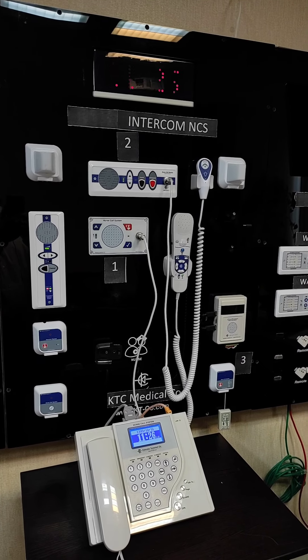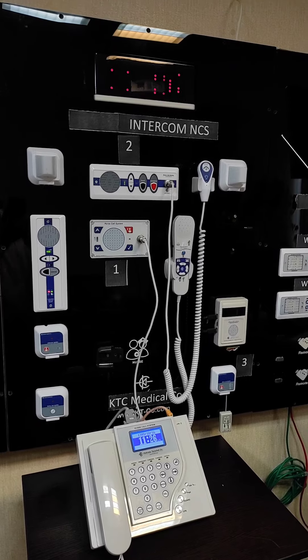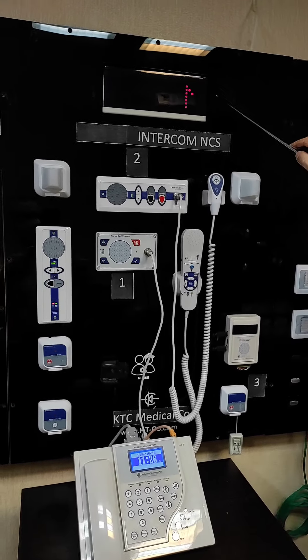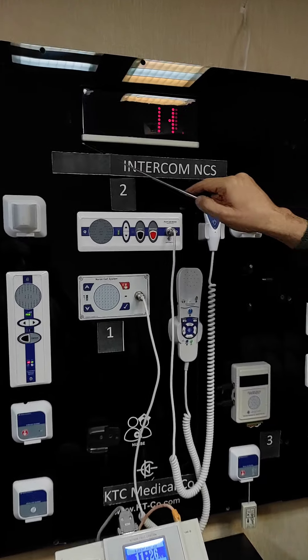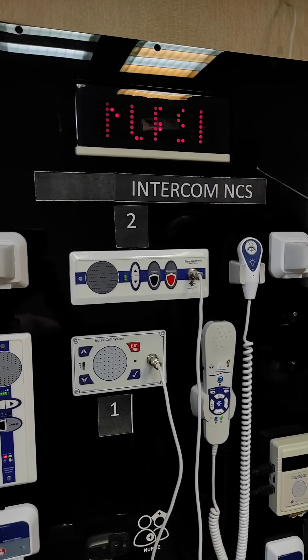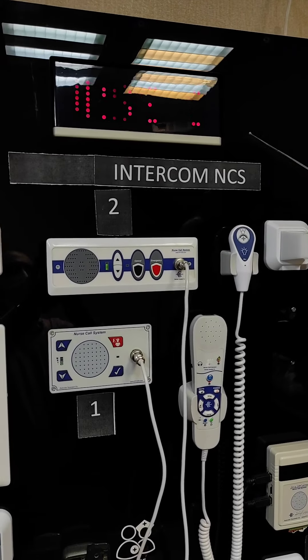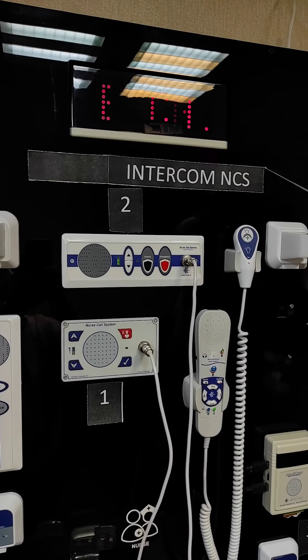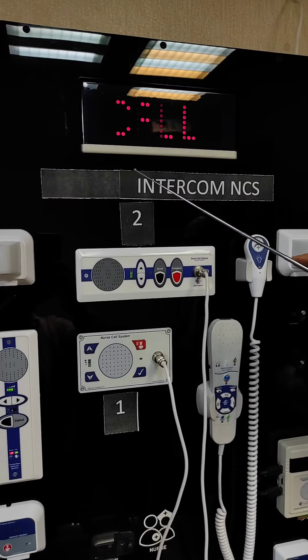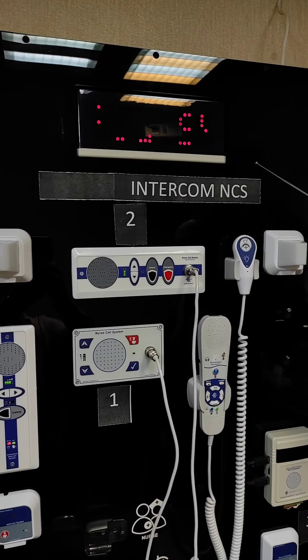First, we want to introduce the elements of the management center. In the management center, first of all, we have the corridor display, as you see it here, that shows the location of the initiated call — meaning the room and bed number of the patient that has initiated the call.